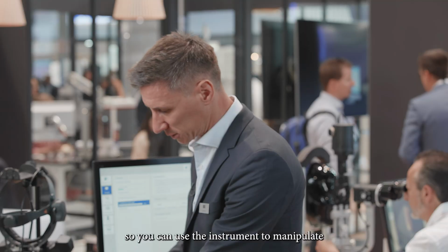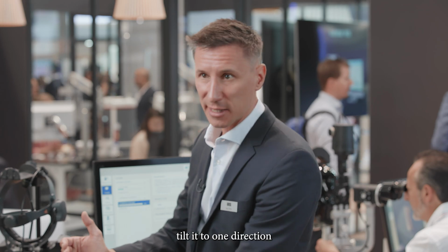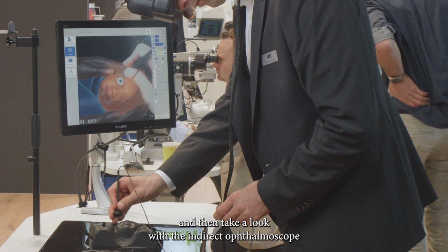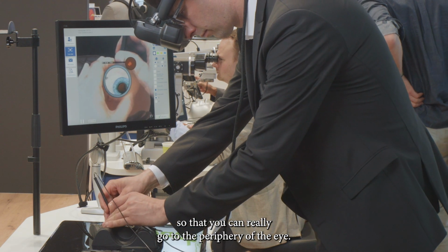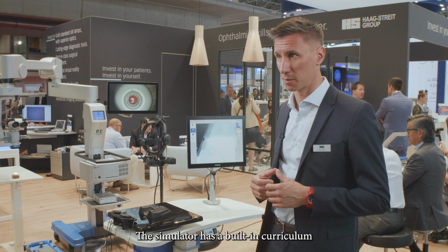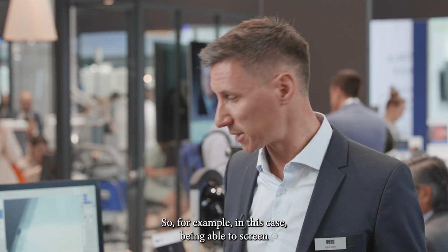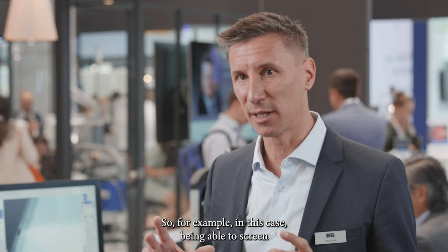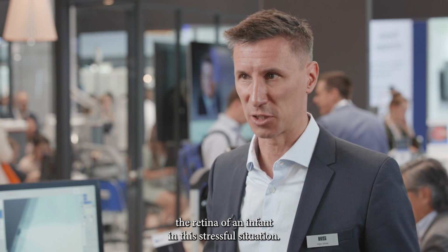So you can use the instrument to manipulate the eye and, for example, tilt it in one direction and then take a look with the indirect ophthalmoscope so that you can really go to the periphery of the eye. The simulator has a built-in curriculum that basically starts with the device handling. So, for example, in this case, being able to screen the retina of an infant in this stressful situation.